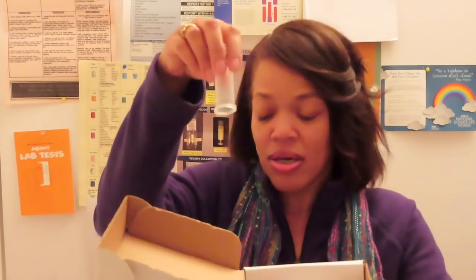This is what comes in your flat box — the flat box that started the whole thing. There are two hubs in your flat box; you get two holders, two hubs. You get 10 tubes, two needles — a butterfly needle and a straight needle, both 23 gauge. You get two band-aids, two alcohol preps, two to four gauze, and a tourniquet. Those are your supplies.